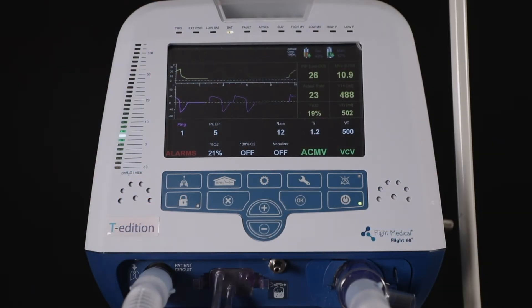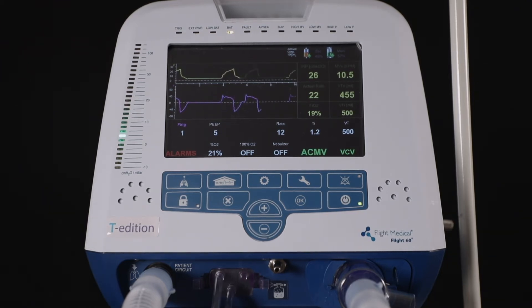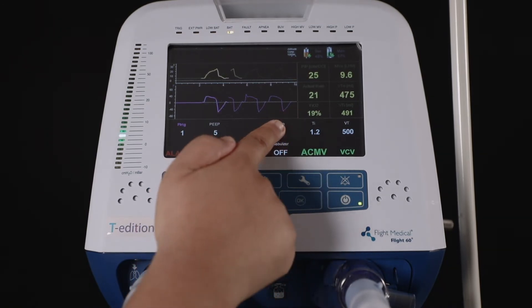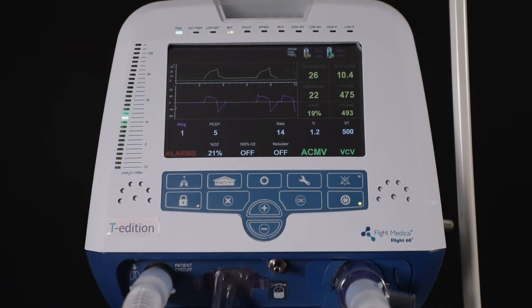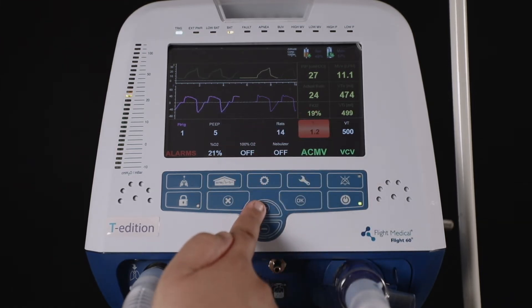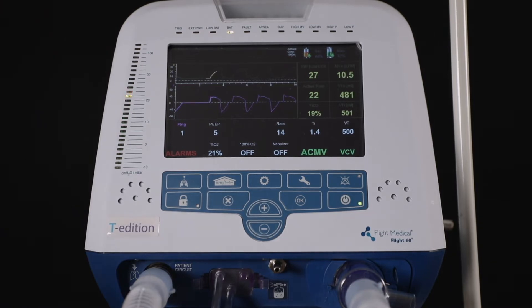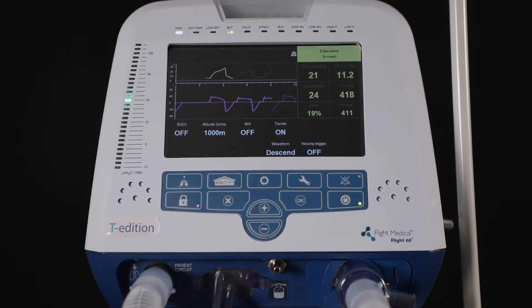In ACMV mode, time-activated mandatory breaths are delivered in accordance with the rate setting. For example, let's set the rate of breath at 14 and TI at 1.4. In this example, the patient is not attempting a breath, but every four seconds a fixed volume will be delivered regardless.